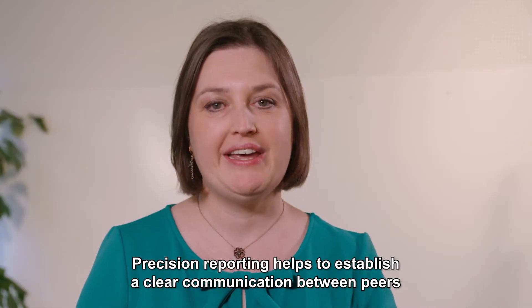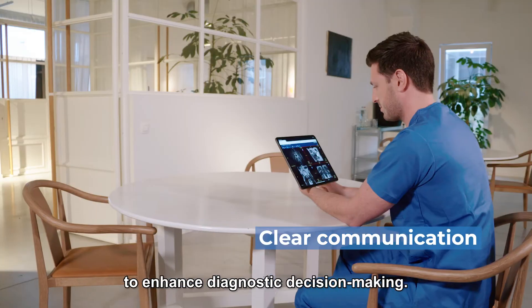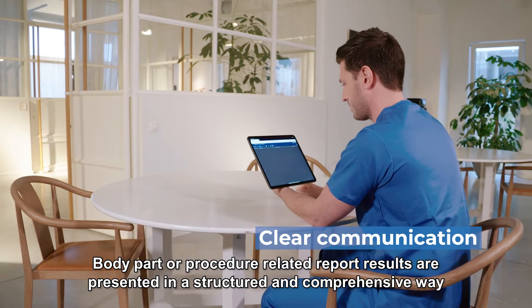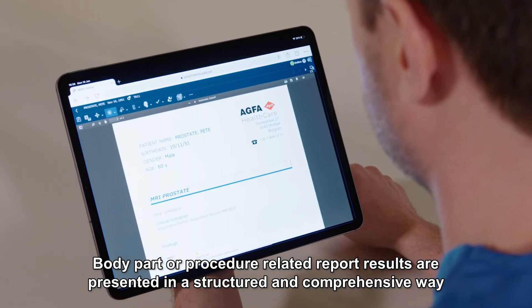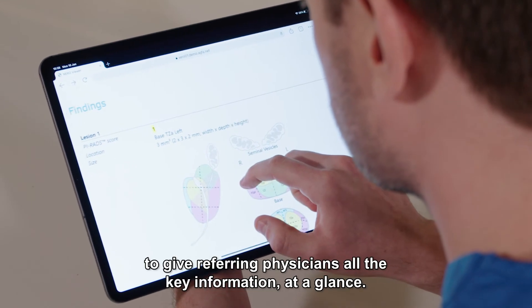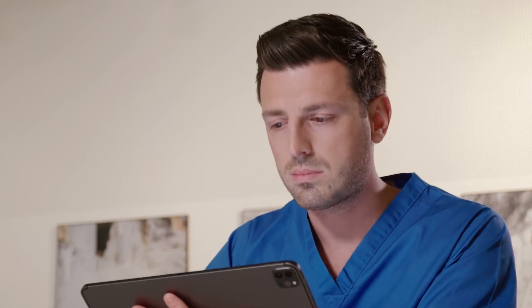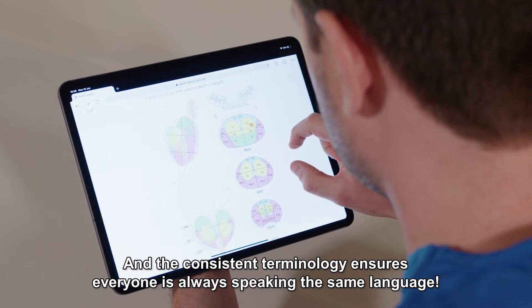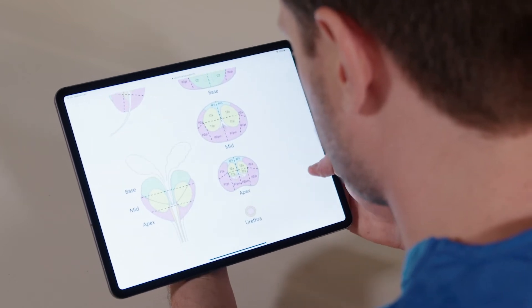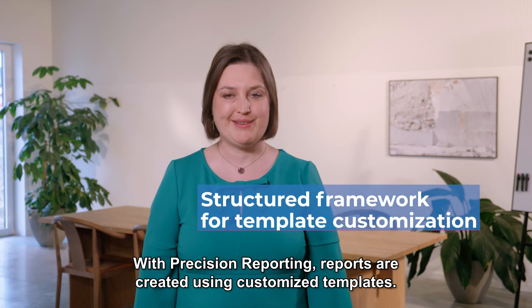Precision Reporting helps to establish clear communication between peers to enhance diagnostic decision making. Body part or procedure-related report results are presented in a structured and comprehensive way to give referring physicians all the key information at a glance. The consistent terminology ensures everyone is always speaking the same language.